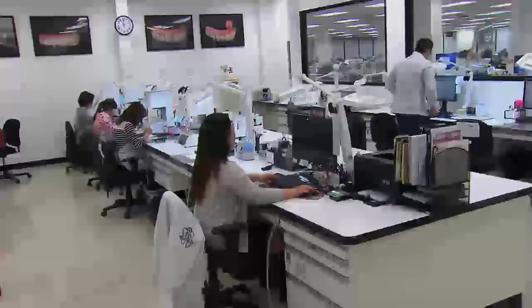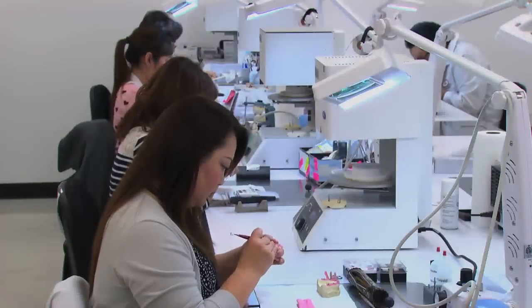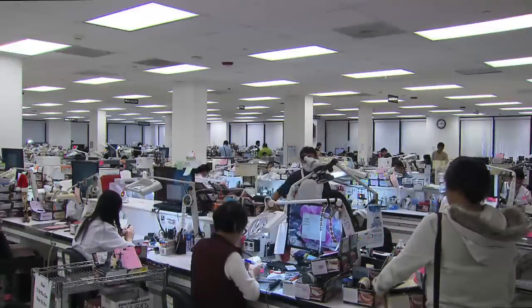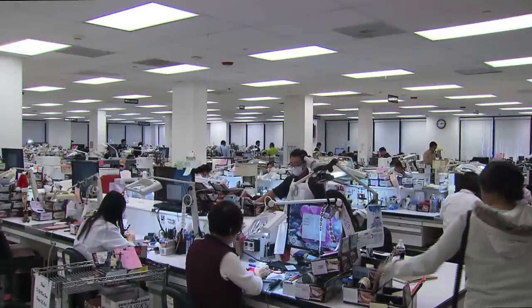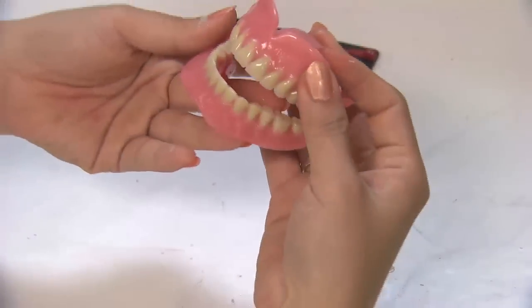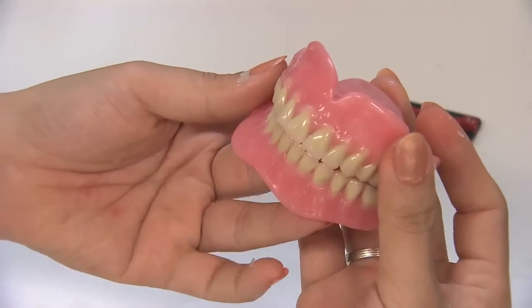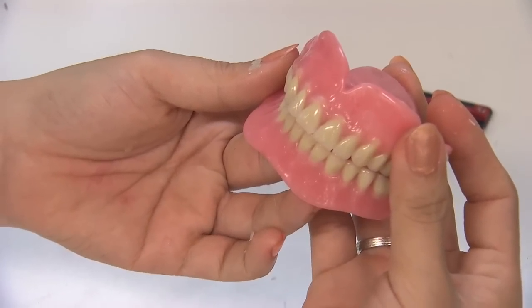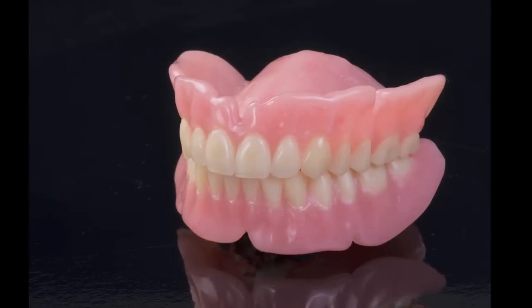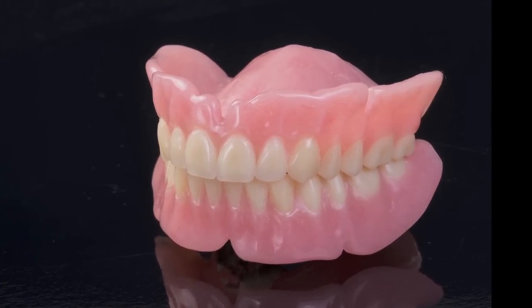Once the try-in is approved, the appliance is sent back to the lab for final processing with the SR-IvoCAP injection system. After a laboratory technician sets all the denture teeth into the final acrylic CAD-CAM denture base, the denture is ready to be sent to the clinician for final delivery.